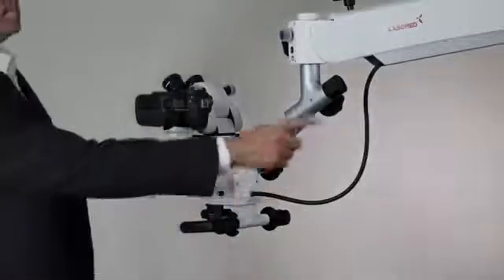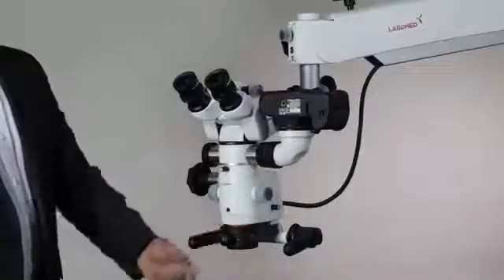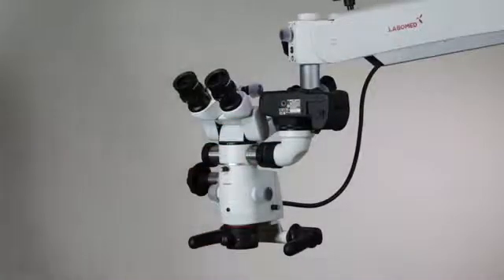A unique aspect of the LaboMed design is a counterbalancing carrier that corrects for any weight added by accessories. Adding an accessory such as a DSLR changes the weight distribution of the microscope so that it may tip to the heavier side. With a simple adjustment to the counterbalance system, the extra weight is offset and the microscope becomes stable once again.